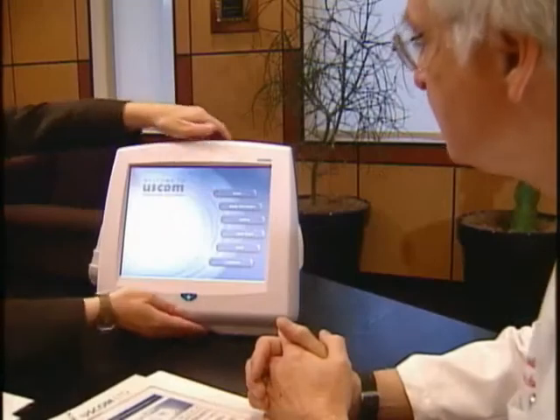Whereas the echo machine is much more inconvenient to bring into the room in the middle of the night, that sort of thing. And it's also much more expensive to operate, much more expensive piece of equipment, and the operators are more expensive to have available. So you're selling portability, is that what you're telling me? Right. Okay. It's entirely portable.